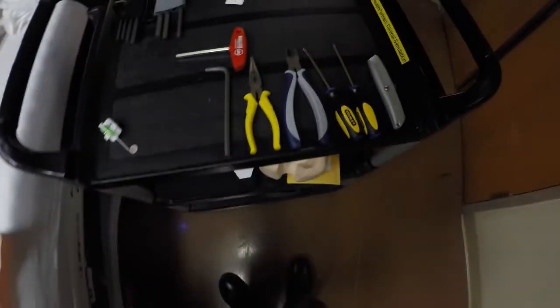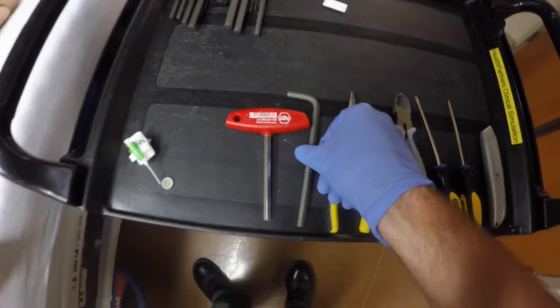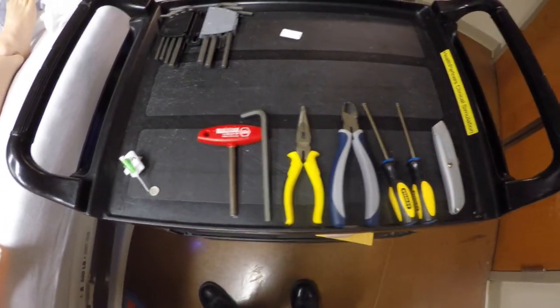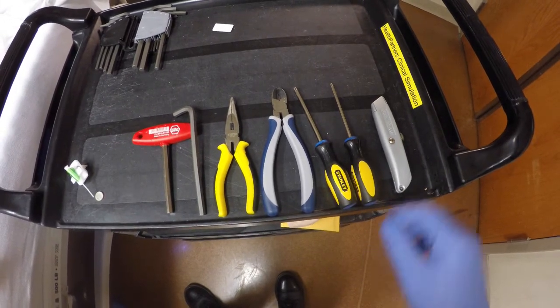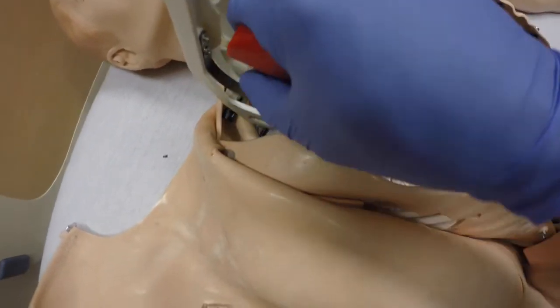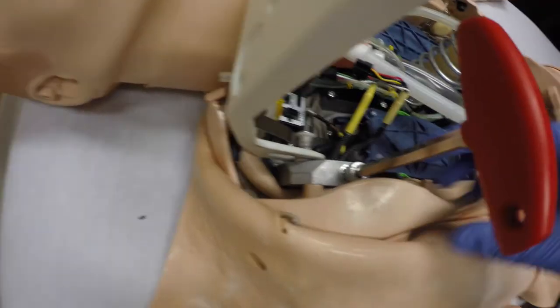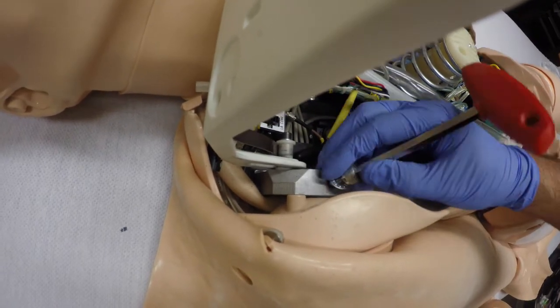The tools for the job we're going to need today are potentially the Allen wrench that came with the mannequin or a number eight millimeter Allen wrench, a pair of needle-nose pliers, end snips, some various Phillips screwdrivers, and a utility knife. Next, we're going to remove this bolt. Don't lose the washer like I do every time — set that aside.